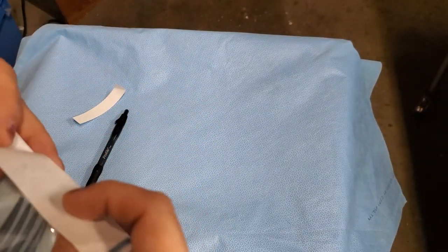then we can remove this sticker. That exposes the adhesive side of the tab. I'm going to put that over carefully so that we can make an actual seal there. We want to make sure that we're getting the ledge here. And you can see some of that here where the blue is definitely activated and sealed underneath that.